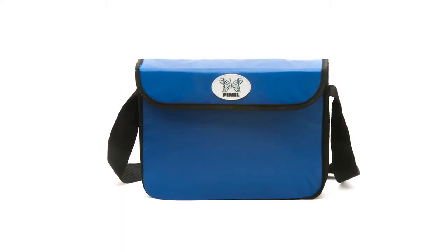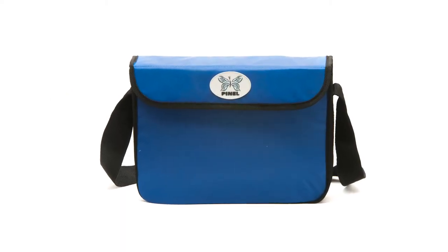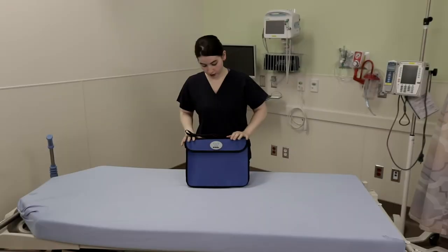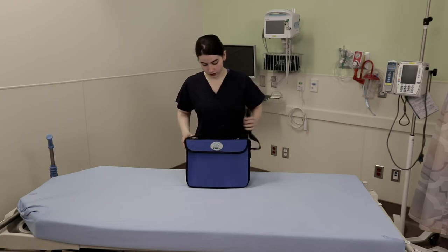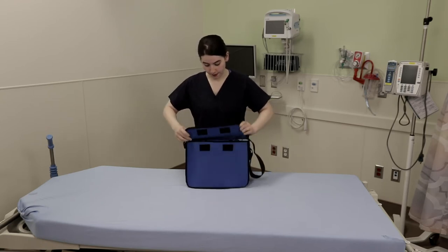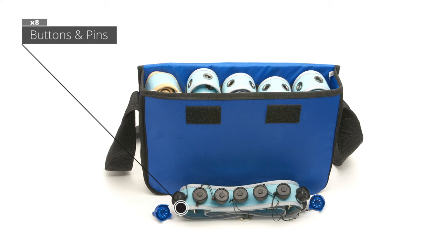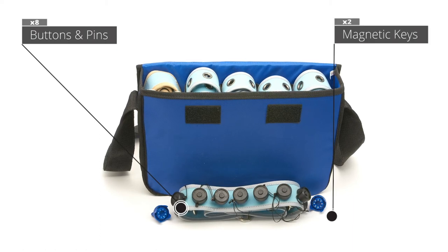The smaller blue bag is the emergency restraint kit used for crisis restraining in emergency departments and ambulances. All of these items are included in the complete kit and have been described earlier, but we'll identify them now. The top layer contains two short utility straps that hold eight buttons, pins, and lanyards. At the end of the buckle are two magnetic keys.